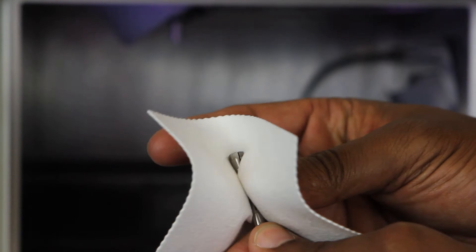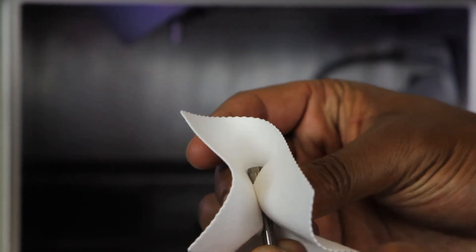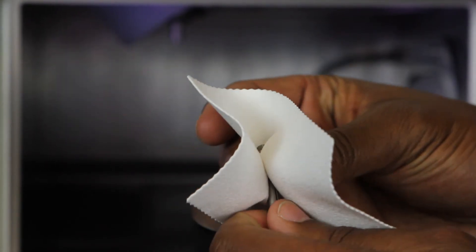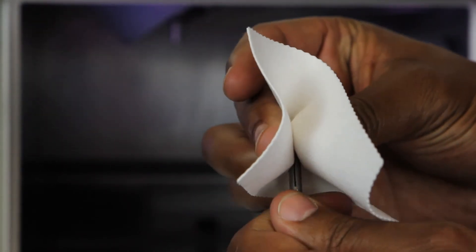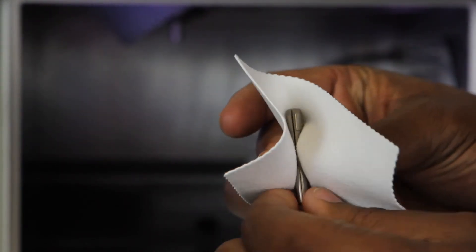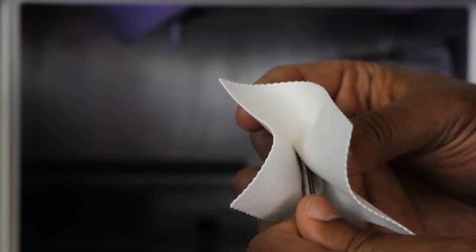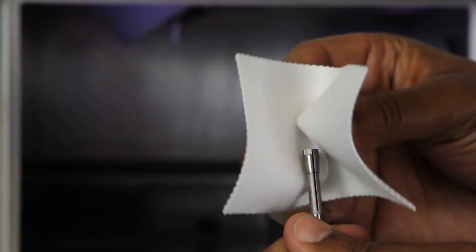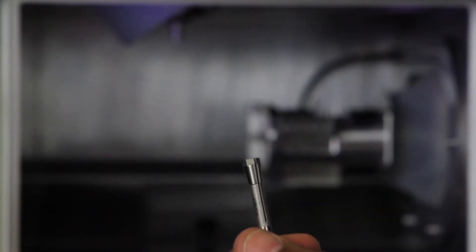Next, use the cloth for care to clean the outside of the collet. Do not grip the collet tightly as it may cause damage to the collet.